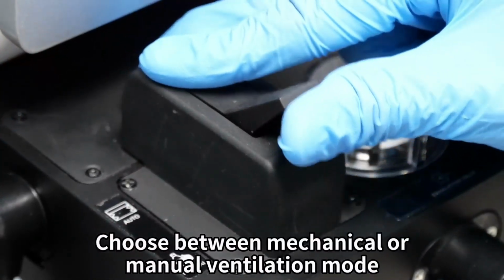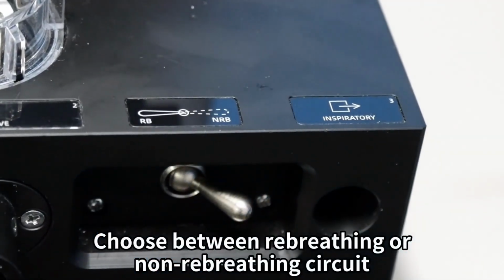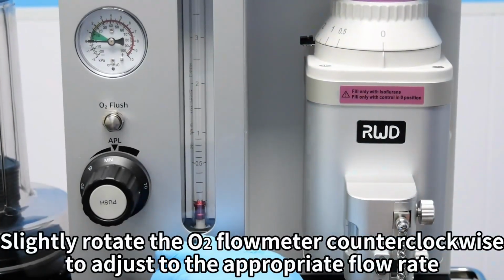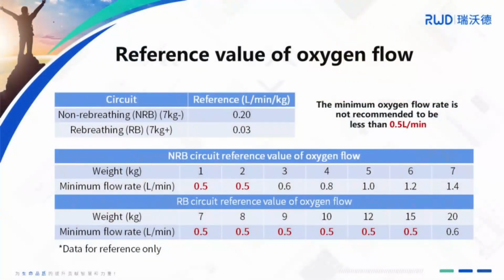Choose between mechanical or manual ventilation mode. Choose between rebreathing or non-rebreathing circuit. Slightly rotate the oxygen flow meter counterclockwise to adjust to the appropriate flow rate. Please check the reference value of oxygen flow regulation as shown.